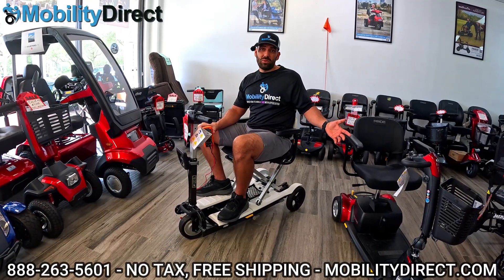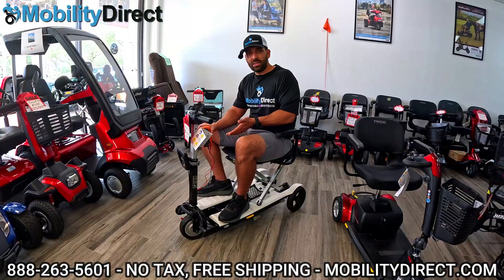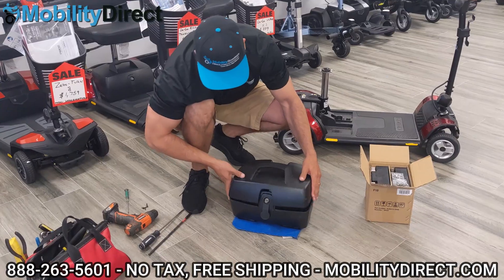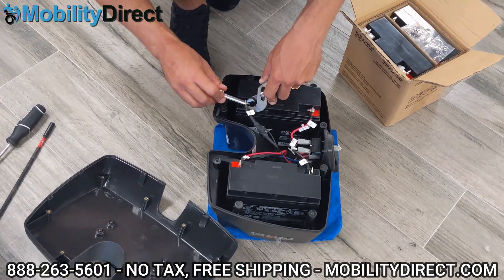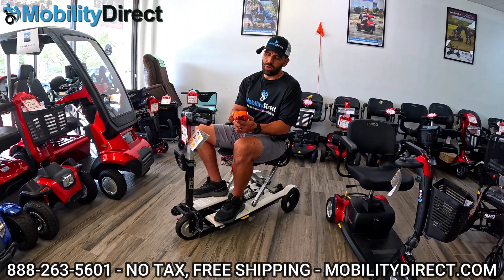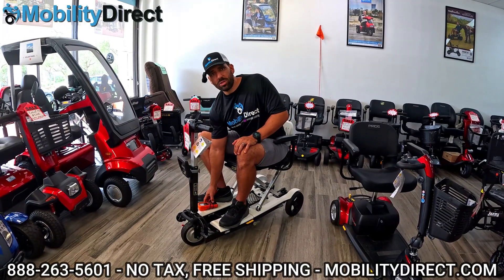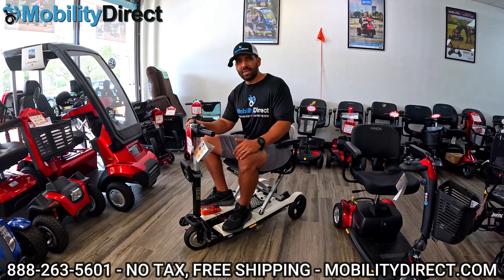If you need to replace your batteries, we have tutorial videos — it's pretty straightforward. If it's a lithium battery, most of the time you just need to buy a new battery and it connects to your scooter. On older models with sealed lead acid batteries, you're going to have a battery box to crack open. Usually you just take out eight or ten screws from the bottom of the battery container, open it up, and you'll find two 12-volt batteries in there, which you can replace on your own if you're handy with a screwdriver and a wrench. If you have doubts, come on by to our store or your local dealer and have them test your batteries for you. All certified dealers for Pride or Golden Technologies or any major brands should have a technician on site who can test your batteries.